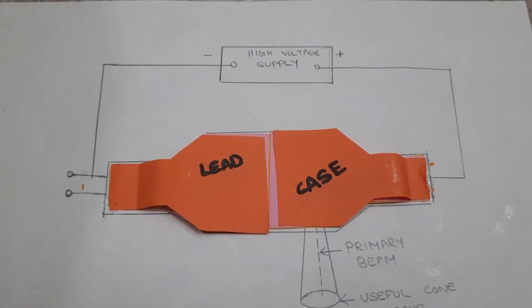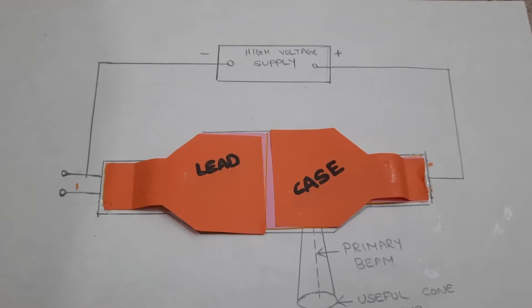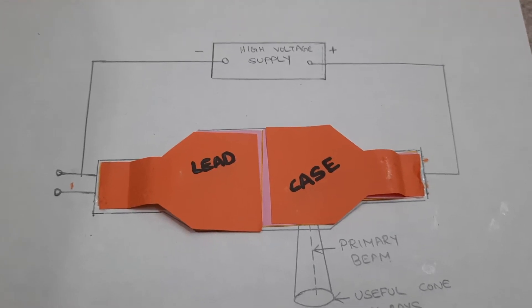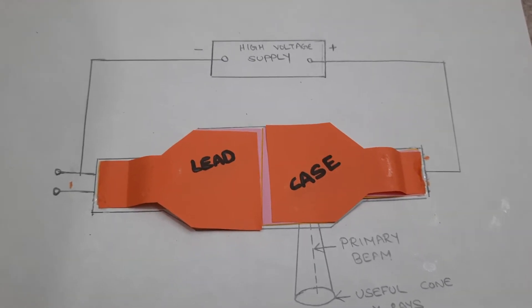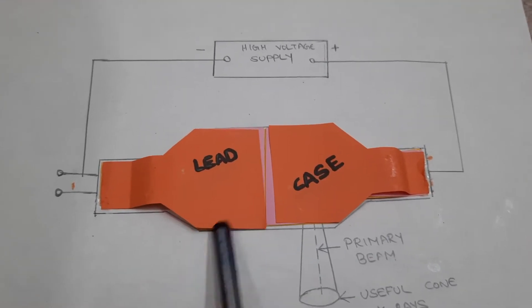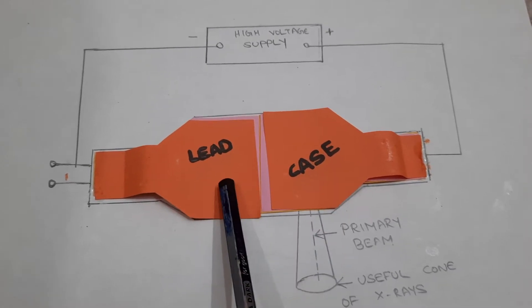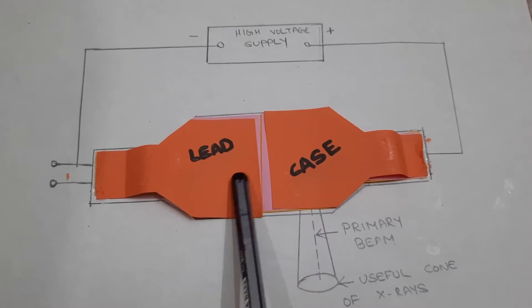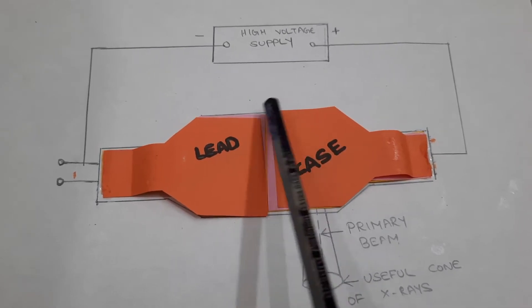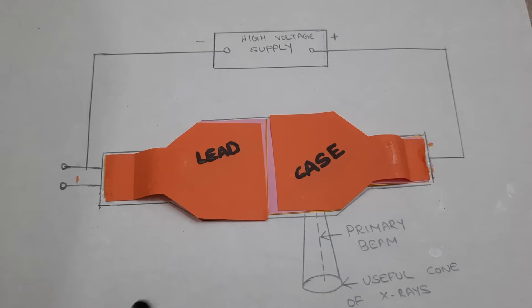In this picture you can see an image of an x-ray tube. The x-ray tube is covered by a lead case. The importance of this lead case is that it enables the prevention of radiation leaking into the external environment, apart from the window through which the x-ray passes.